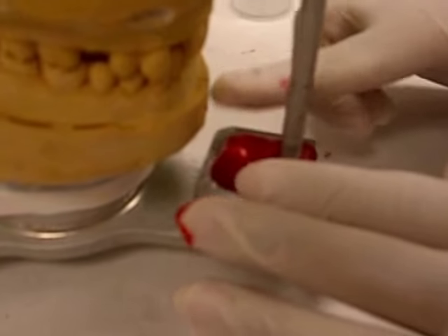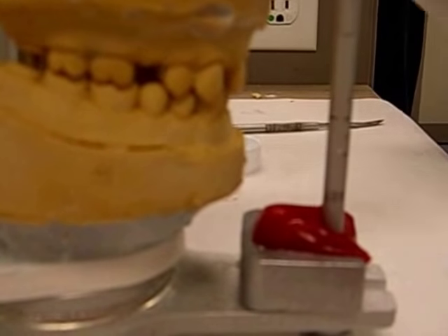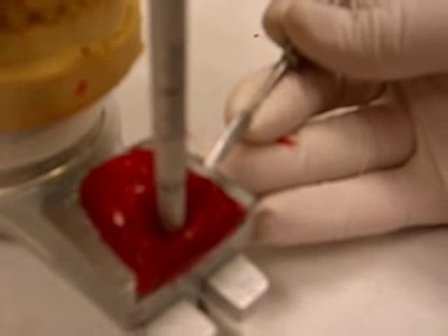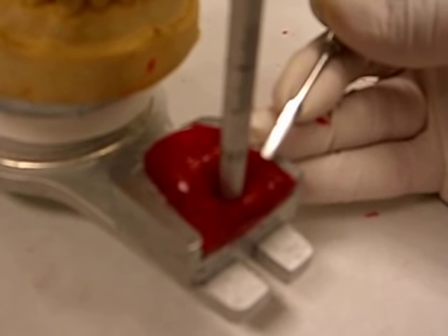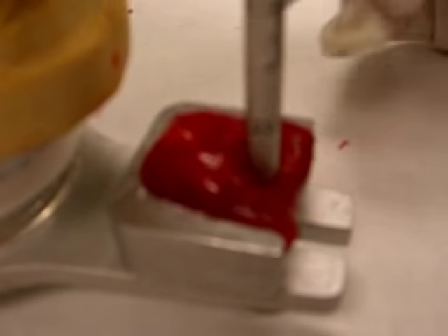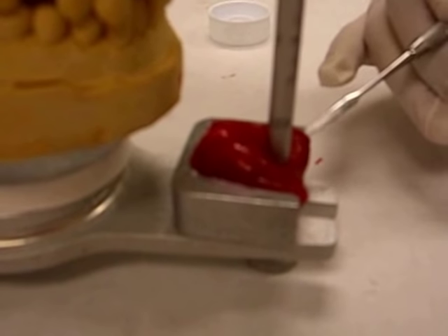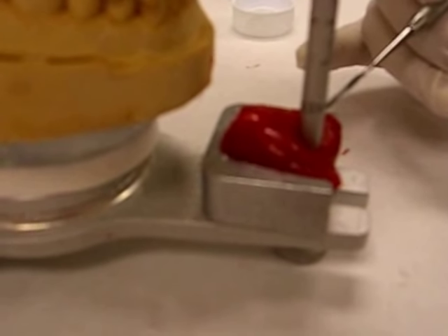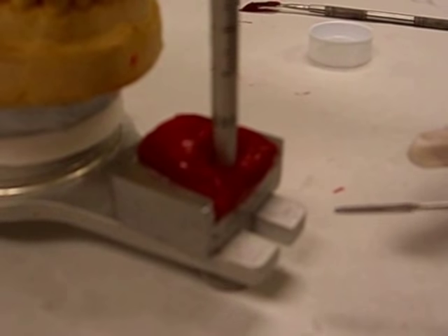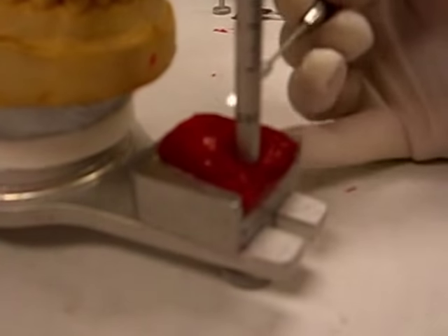After it sets — and it's really hot — we make sure we trim the excess. Make sure you do not touch where the movements end, because if you trim it, you lose that record that you made. So make sure you leave intact all the borders — around here, around here, and the same in the posterior. What you can trim, if you want, is the anterior portion of it. So make sure when you reposition this custom anterior guide table into the metal table, the pin touches it. Be careful not to trim the lateral portions or the posterior portion.